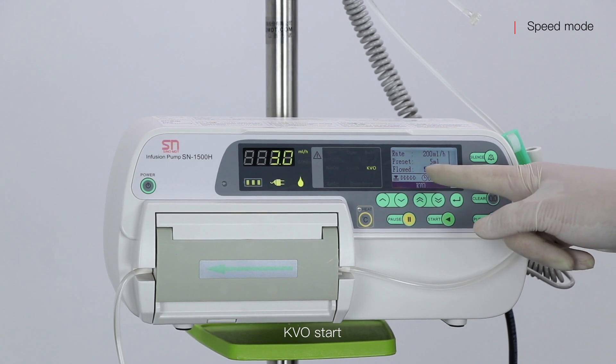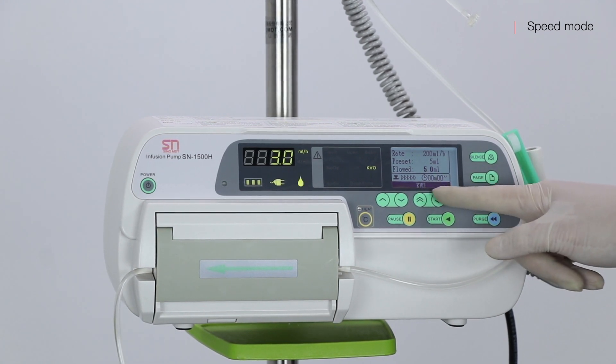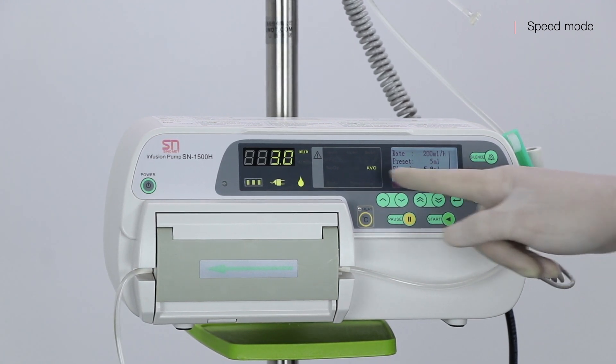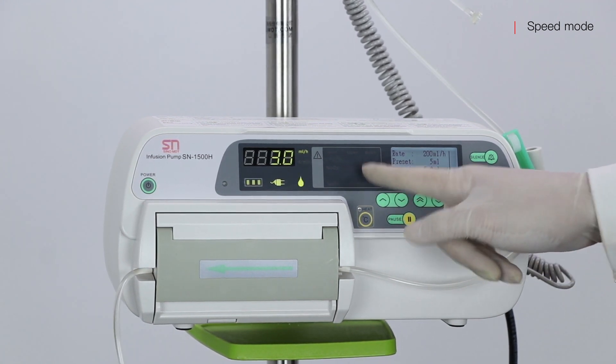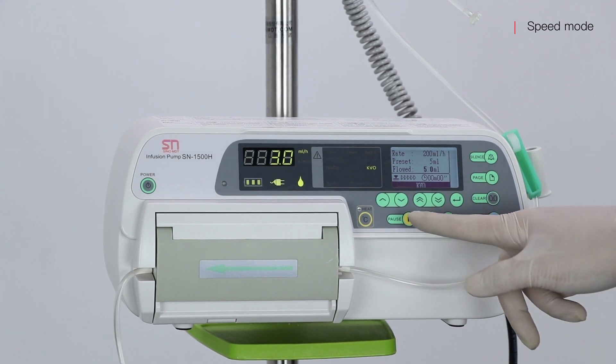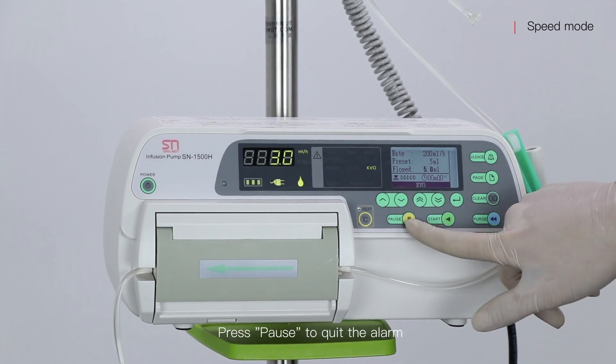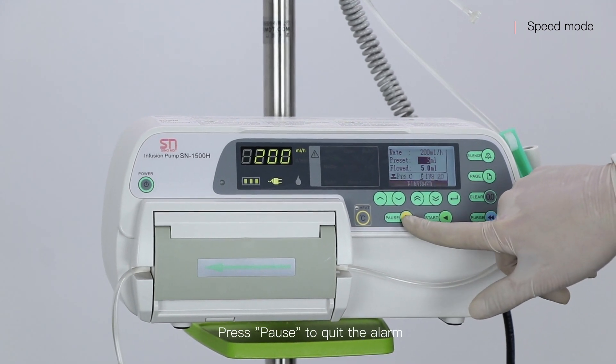KVO starts. Press Pause to quit the alarm.